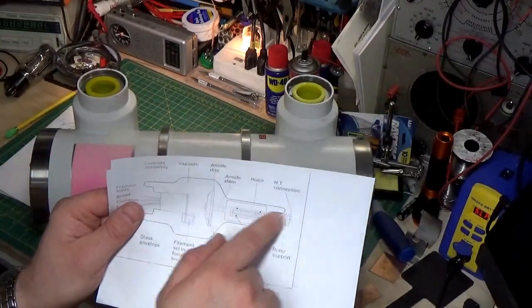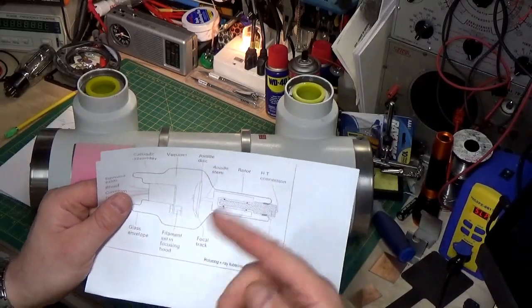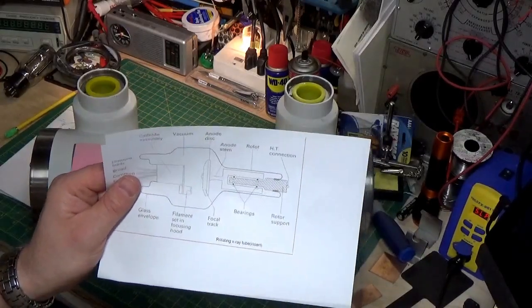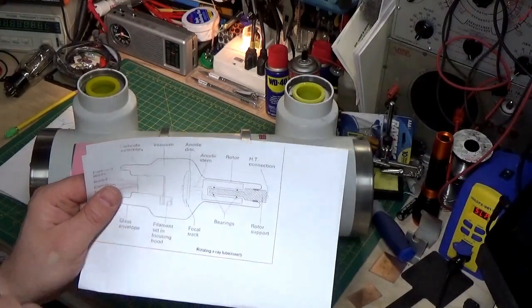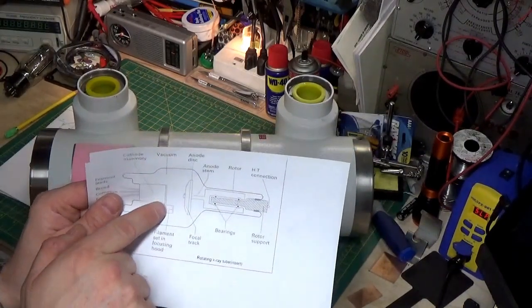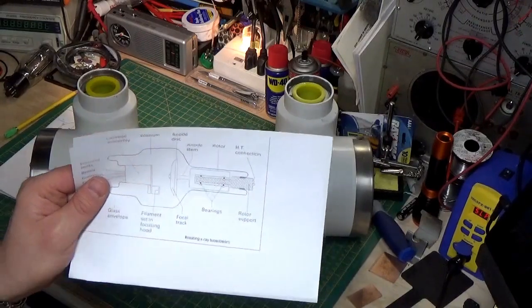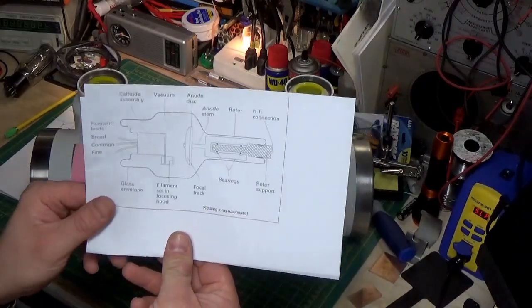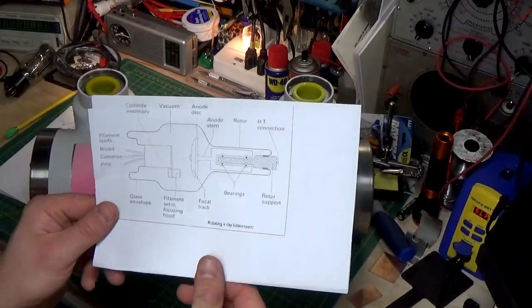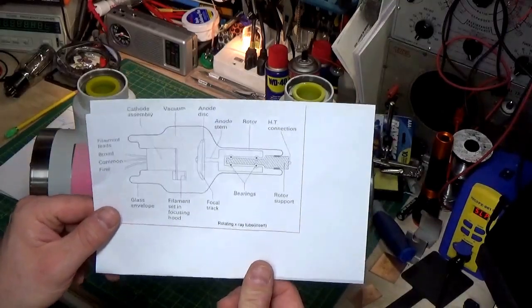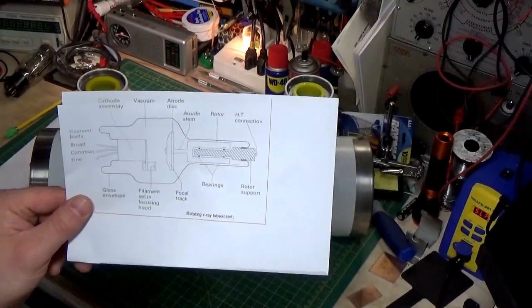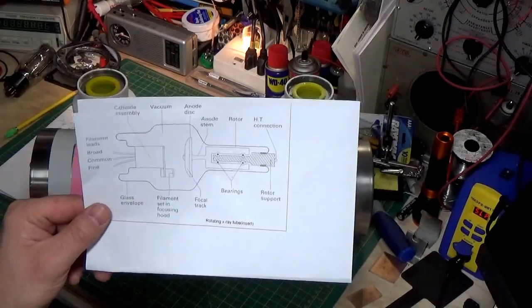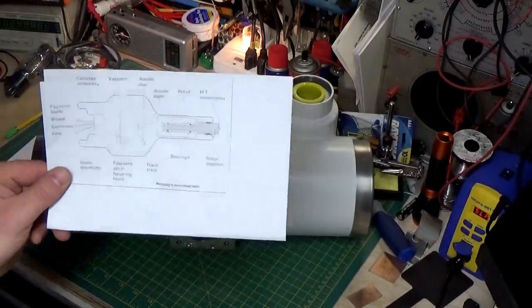And we can get a lot more energy out of this tube than if we didn't move the anode. So, that's all this is. This whole thing here is an anode, but it's a rotating, spinning, moving anode. This is our filament cup. And really, this little cup holds the filament. The filament runs on 12 volts. It actually is very similar to an old-fashioned headlight from a car. It's very similar characteristics size-wise, thickness-wise, current-wise, so forth and so on.